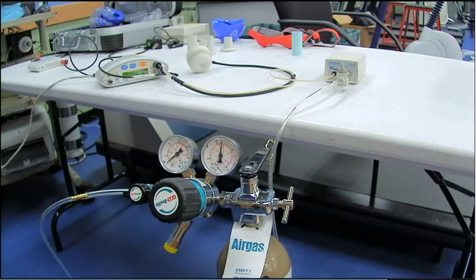So it's taking that measured gas from inside of that tank, and it's measuring it to make sure that it has the right sampling, and it's sampling it correctly. So it did both the room air, now we're doing the gas.